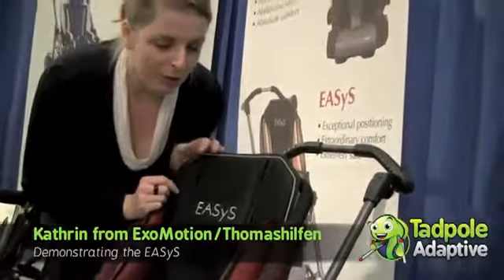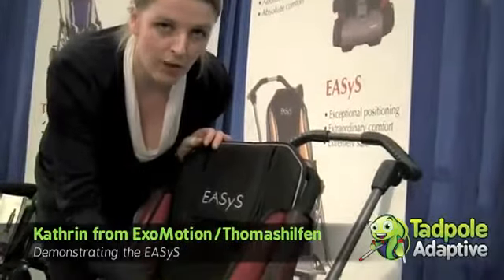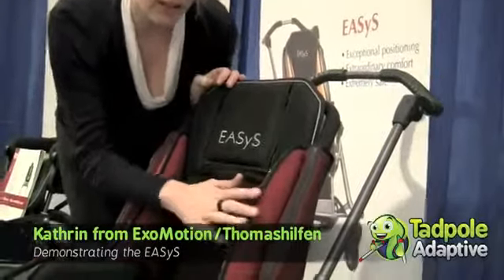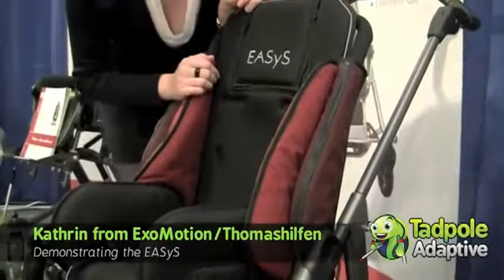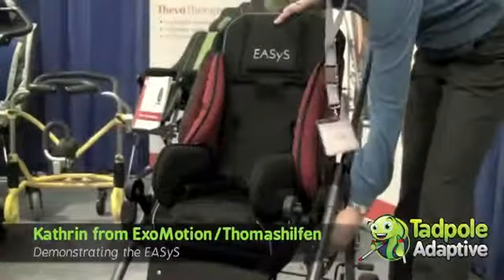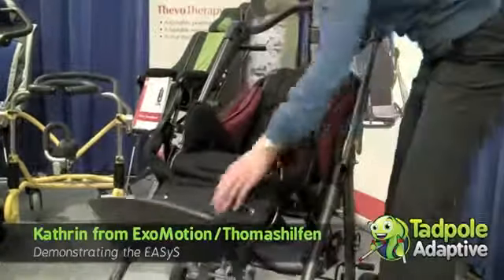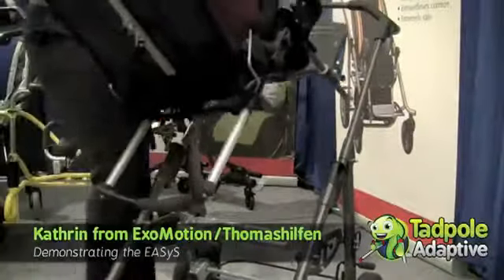What is very nice for you as parents is that you can decide what color you want. We have five different colors like red, yellow, and teal — it's aqua, I guess. It's very easy to change from facing to the front and then facing to the mother or the father.